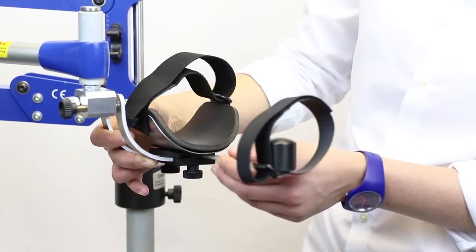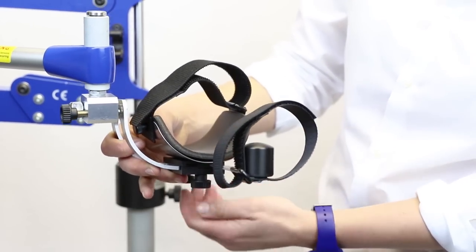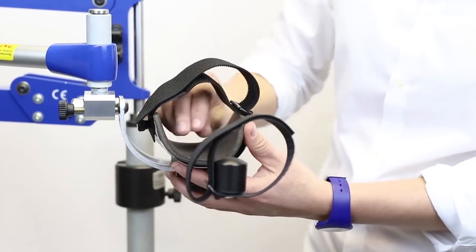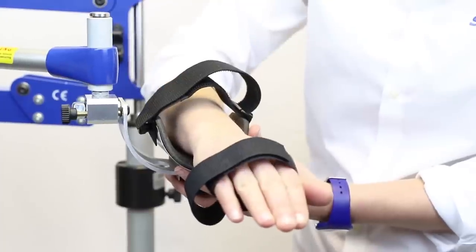If they have a very weak wrist and are not using their hand for tasks you may want to use the wrist stop option.